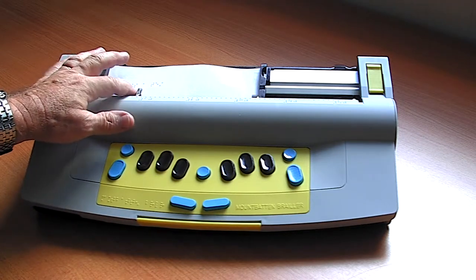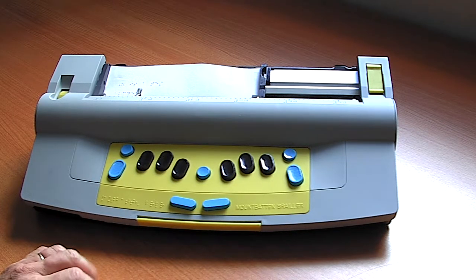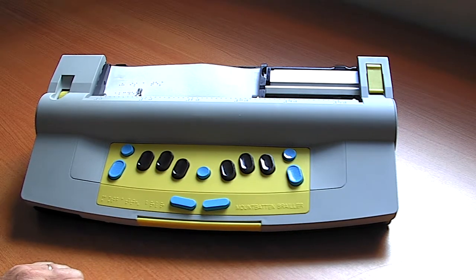This makes it a very powerful early learning tool, very similar to the way other children learn to read and write with pencils and scribbling, forming letters and just checking what shapes they've made.